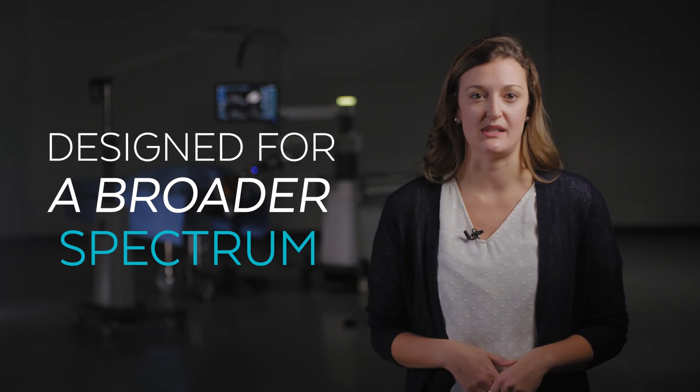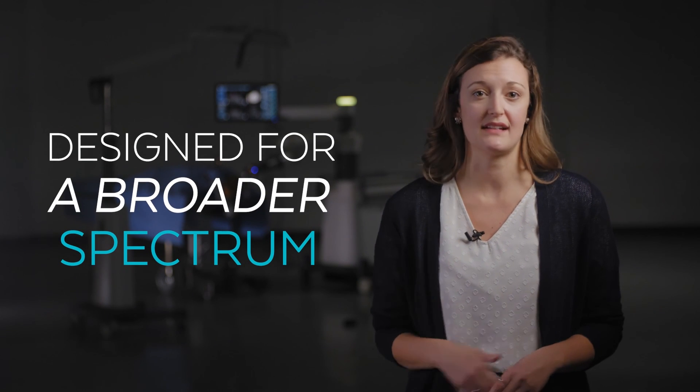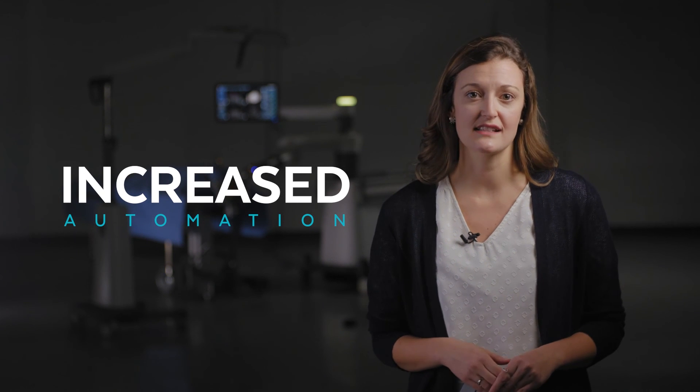Excelsius GPS Cranial Solutions is an open and adaptable system for both common and complex stereotactic procedures, from biopsies and shunts to DBS and stereo EEG. With combined navigation and robotics, the workflow is streamlined and efficient, eliminating the stereotactic arc radius and reducing time spent in the operating room. The integrated smart monitoring and stabilization features make Excelsius GPS Cranial Solutions the most comprehensive robotic navigation platform on the market today.